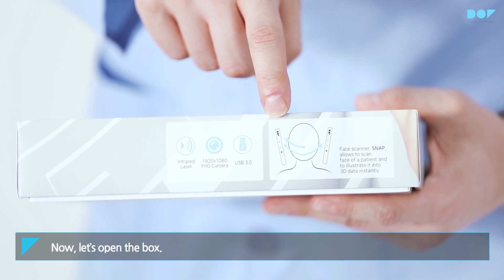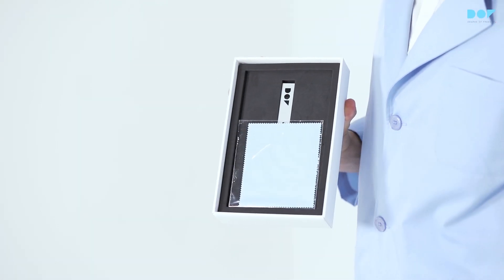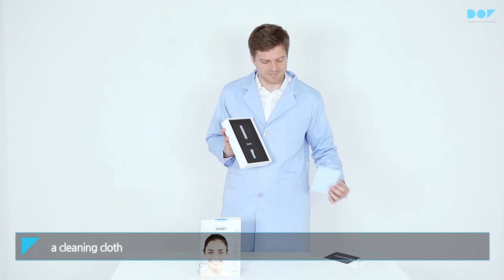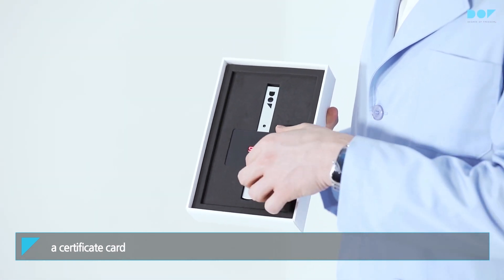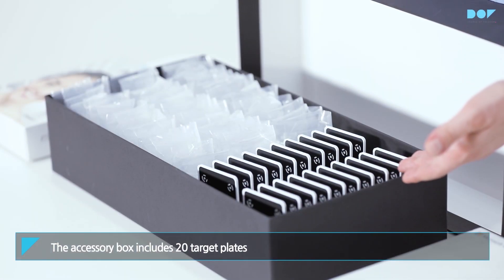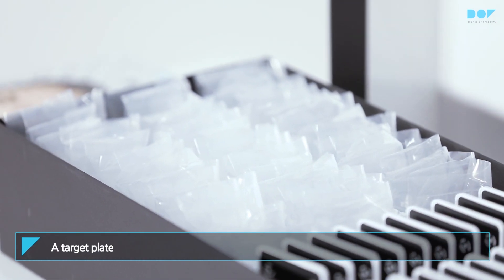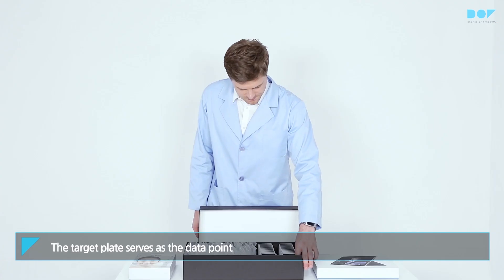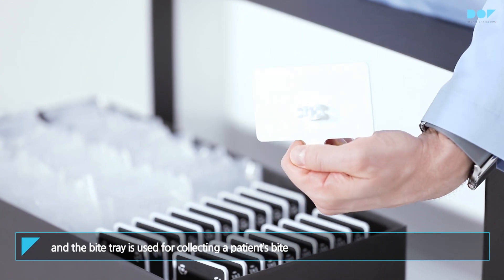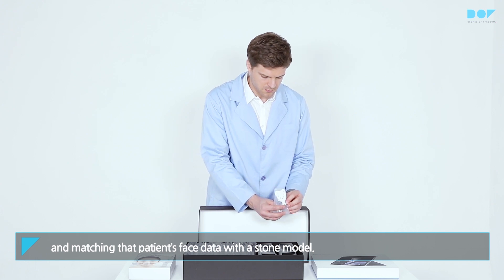Now, let's open the box. The product box includes a basic manual, a cleaning cloth, a certificate card, and of course, Snap. The accessory box includes 20 target plates and 60 bite trays. A target plate must be combined with a bite tray for use. The target plate serves as the data point for recording the bite's position, and the bite tray is used for collecting a patient's bite and matching that patient's face data with a stone model.